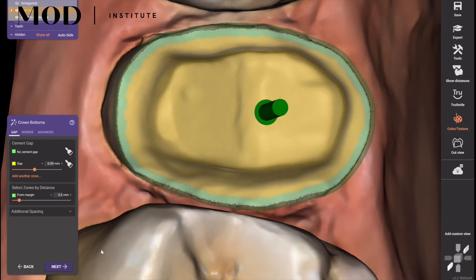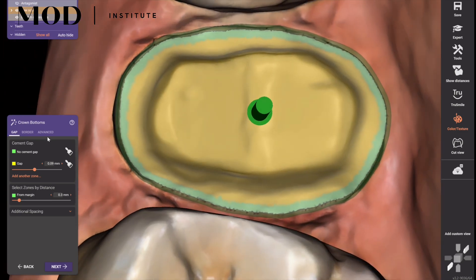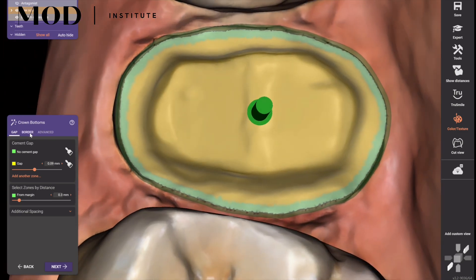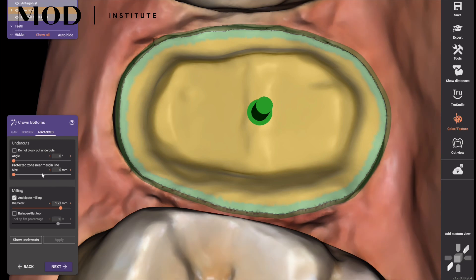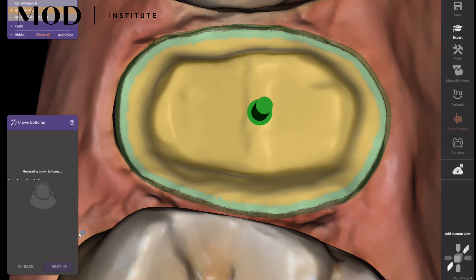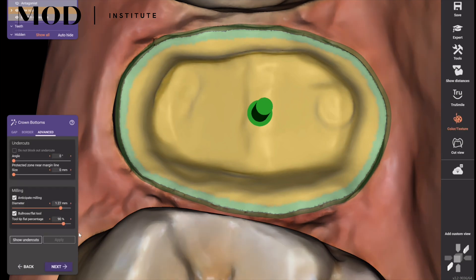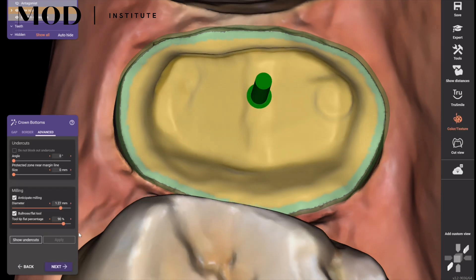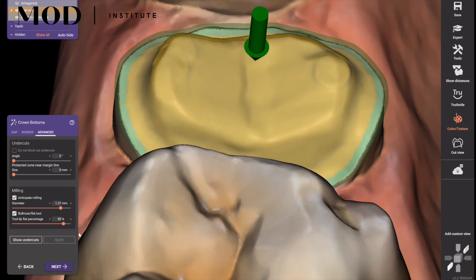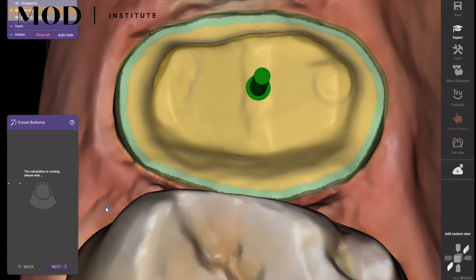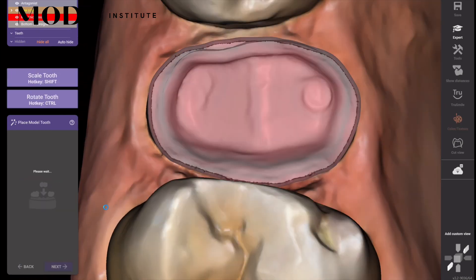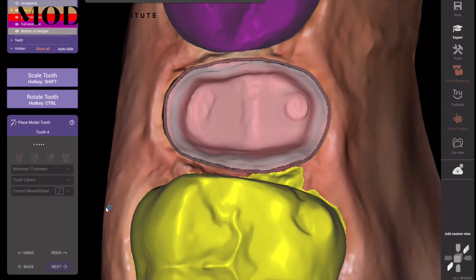Pick your path of insertion, which is also pretty critical. Now here's the thing: on the crown bottoms, go to Advanced, make sure you pick milling bullnose 90% and hit apply. Make sure the bur size is 1.27 millimeters — this is where you get the over-milling simulation, and that's what's critical. That's what a lot of you guys are missing right there.